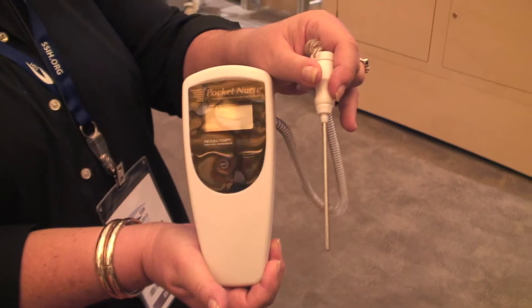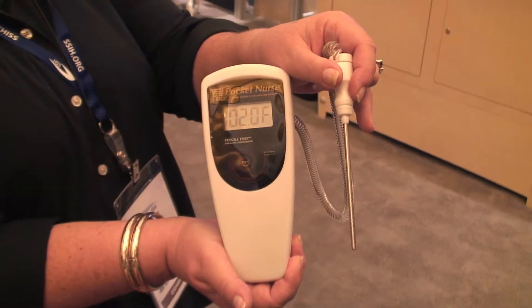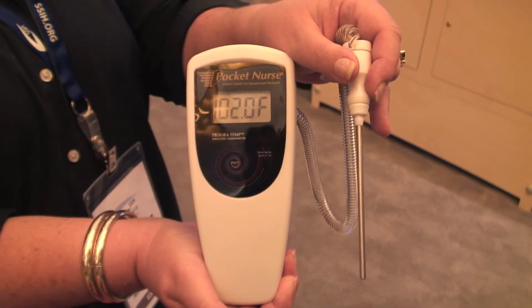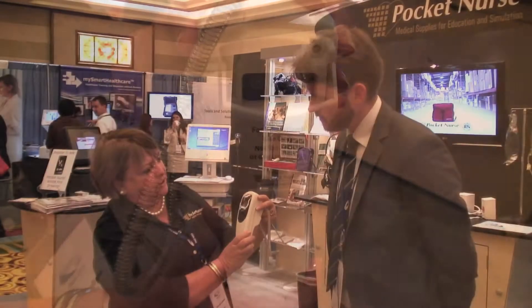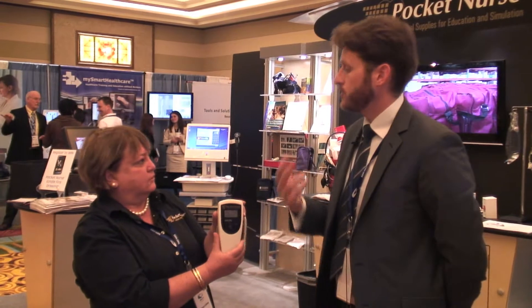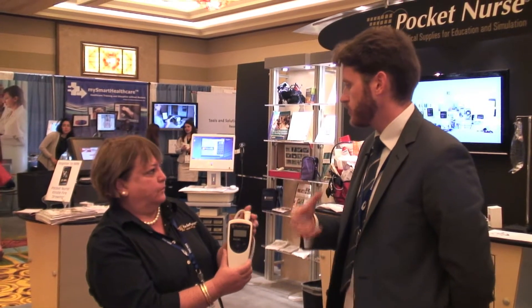The normal selling price is $199. It works just like a real thermometer. It comes with an oral and a rectal probe. When you take the probe out, it will turn on. As the faculty person, you can set it for two temperatures and the time. So you can set one temperature and then after a certain amount of time the temperature will change, enabling the temperature to be read in a simulation scenario — say it's a 15-minute scenario — without needing to go in the room or break fidelity, increasing realism.